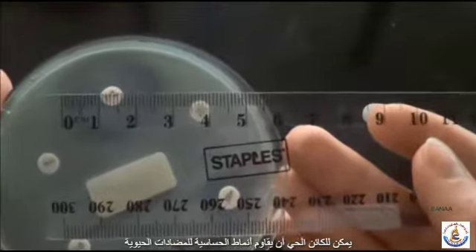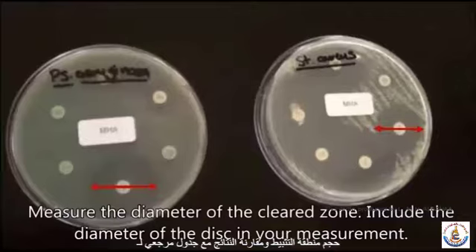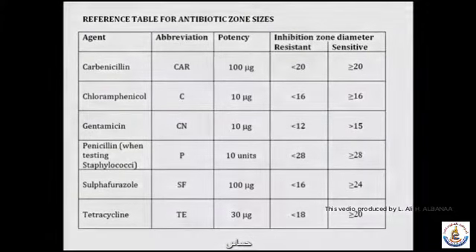Sensitivity patterns can also be measured and recorded as either sensitive or resistant by measuring the inhibition zone size and comparing the results against a reference table of antibiotic zone sizes. If the measured diameter of the zone is larger than the inhibition zone diameter from the reference table, it is then recorded as sensitive.